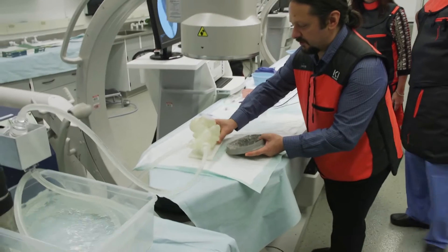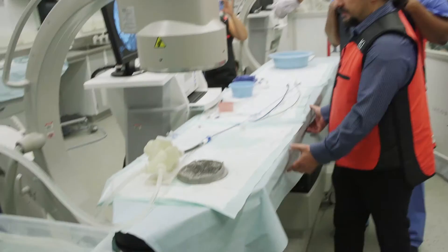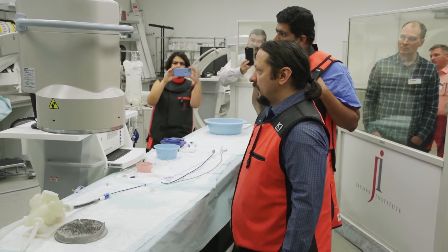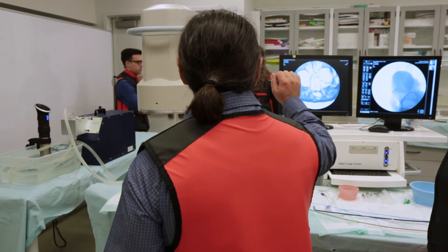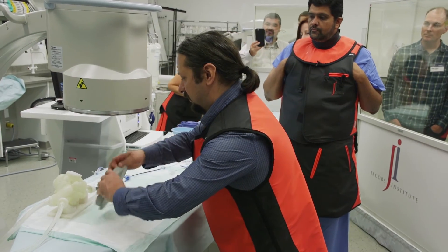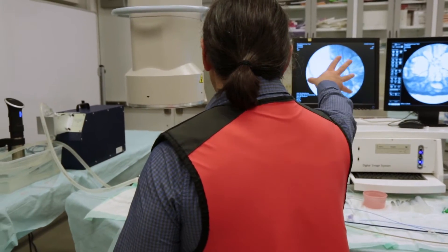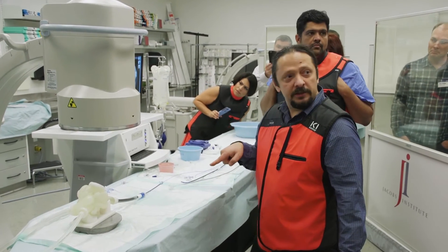If you put it just under the x-rays, there is actually a head phantom. If you want to have this head phantom with a model to do a procedure — to see if you can see those markers on the stent, or can you do all this — if you have a phantom of the vascular in the brain, you go in there and now you can't see your model any longer. You see what you see under the x-rays in the clinic — you simulate it in reality.